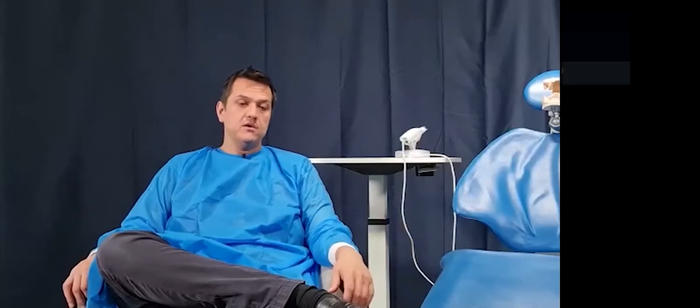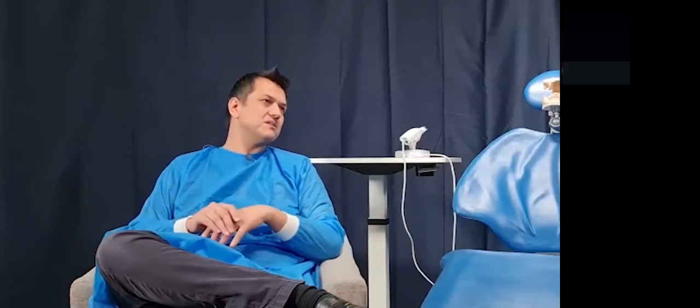I'm a denture practitioner, so I don't have a choice, right? I can go back, or I can do the new way. You might be doing crown preps and single tooth implant scans with your scanner, but because there's so many things moving, this is the main reason. There's a lot of mucosa that's moving, and it's just learning to really control that, and managing those undercuts. But the hardest part, and the reason people go back across the line to pick up that impression tray, is that between the tooth, another tooth, and the stuff in between that moves a lot, it's very hard to get from here to that other solid surface. And that's what I'll try and help everyone through this evening.